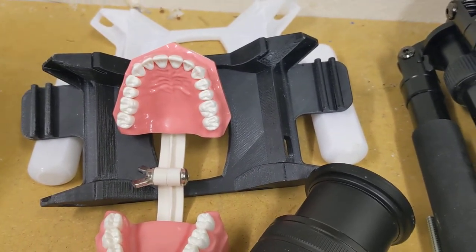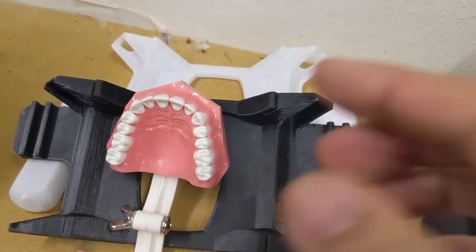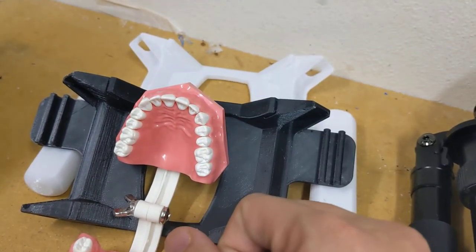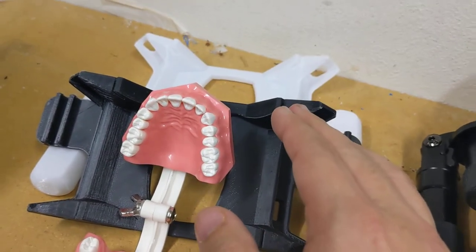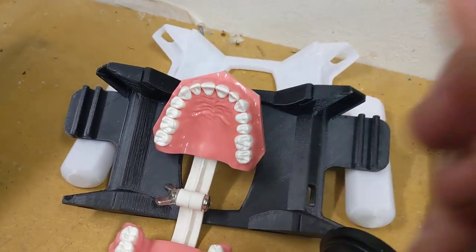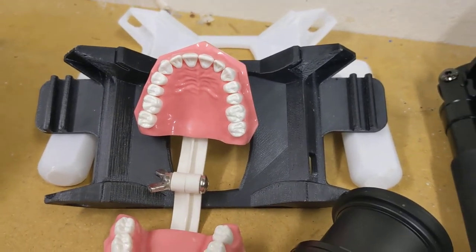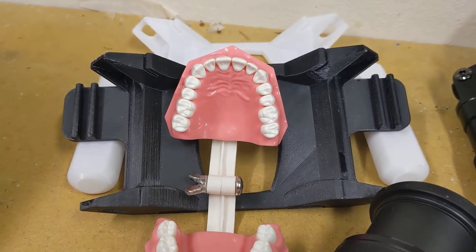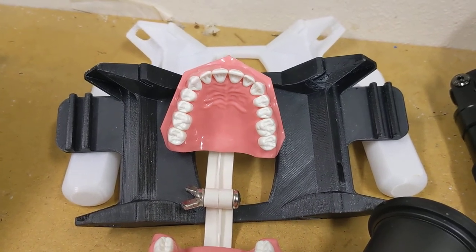And finally, if you're having focus problems particularly in the posterior area, focus on a sharp, bright edge outside the mouth such as the commissure of the lips or the retractors. Back up your camera a little bit, focus on that outside landmark, and then while holding the button, bring it into sharp focus and shoot. I hope that helps you get better focus with your camera and take lots of great images to improve dentistry and patient case acceptance. Until next time, this is Vu signing off.